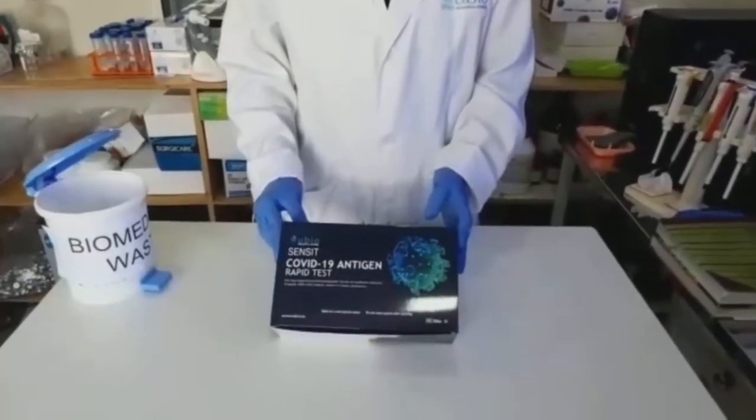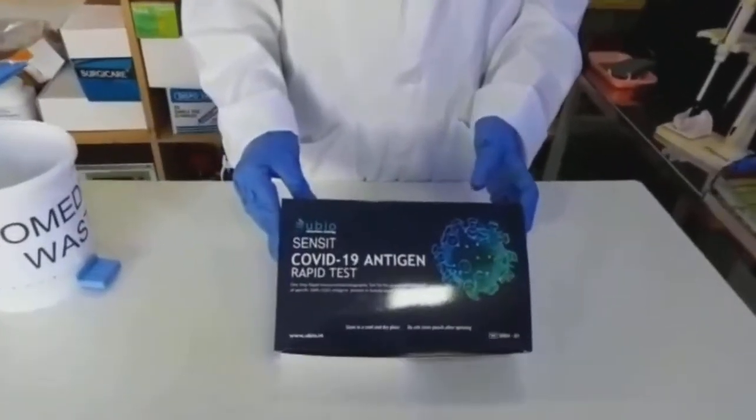Welcome to the video. This is your Biosensit COVID-19 antigen rapid test kit.